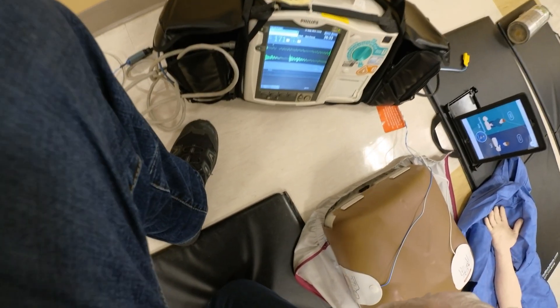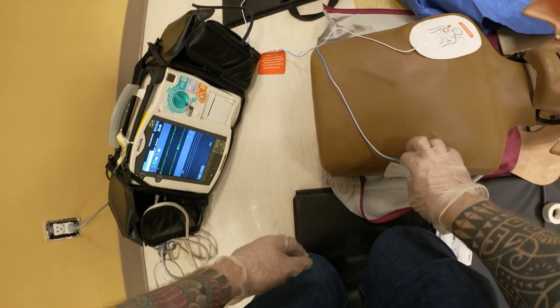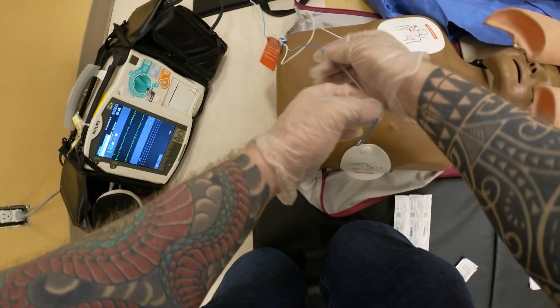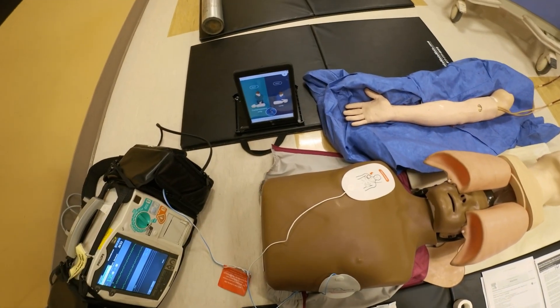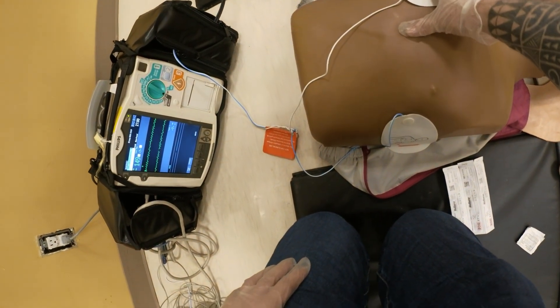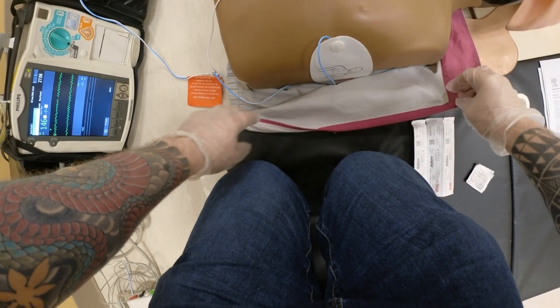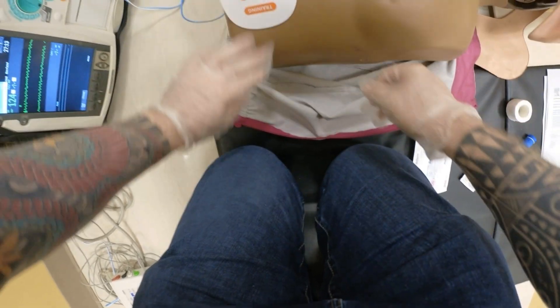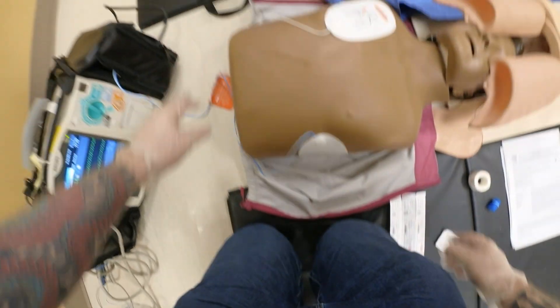If my leads and my pads are connected to my box, what you want to have for the students is you want to take out pads that they can place on the mannequin to simulate application of the monitor. I would have the pads here - you could put this into the side of your monitor so it's coming out from the monitor, and the students are able to apply it in the correct locations. Important to emphasize: this goes below the clavicle, and this goes at the mid-axillary line. You definitely want to unzip the jacket when placing the pads - they don't go on the jacket. I often see students place this on the belly, and it's important to correct them and emphasize the correct anatomical placements of all the devices.